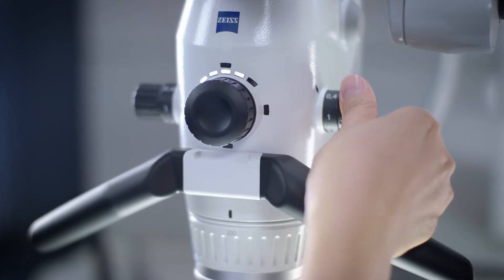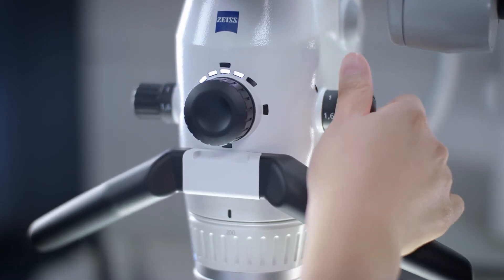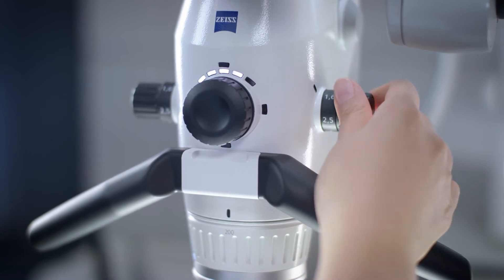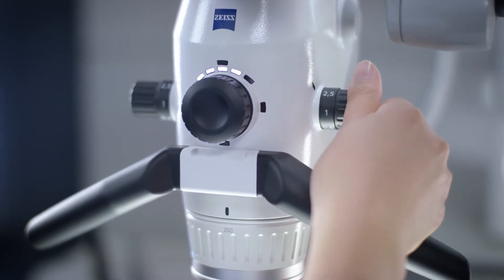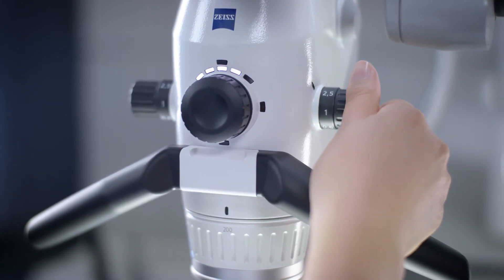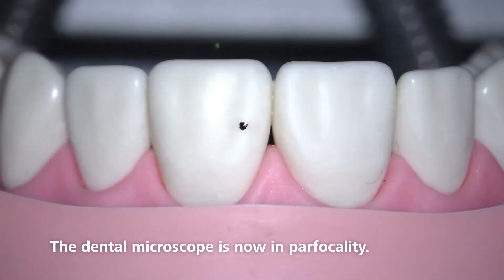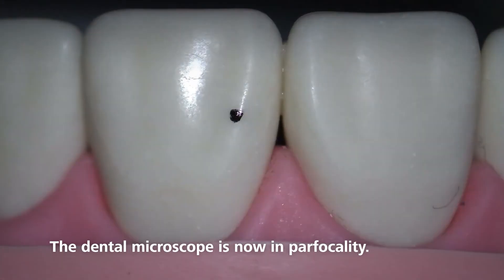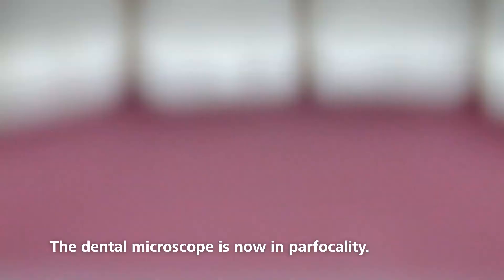You can now select the magnification required, from a magnification factor of 0.4 to a factor of 2.5. The focal plane will be retained and the image will stay in focus regardless of the magnification.